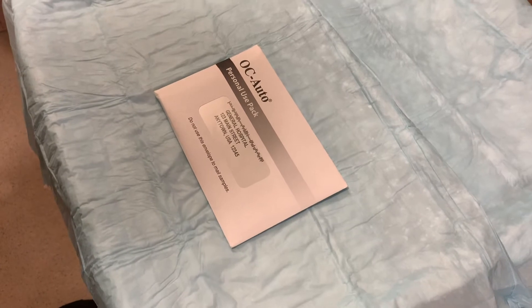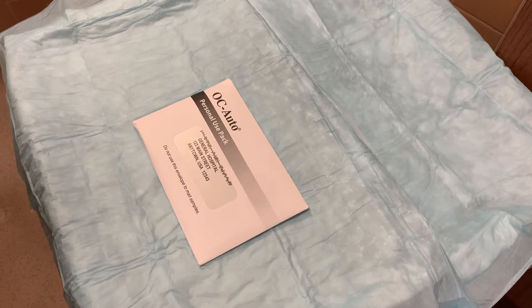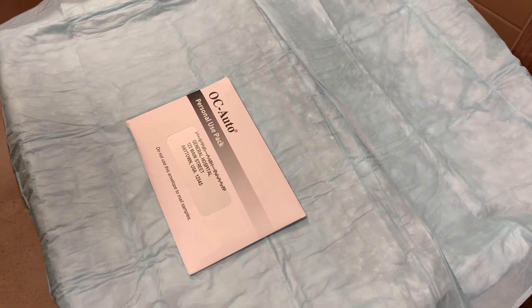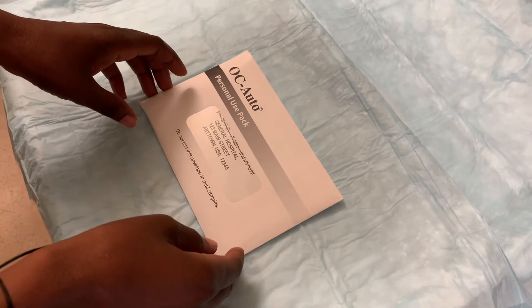This is a fit kit. You may receive it in clinic or at home by mail. This test is to screen for colon cancer.